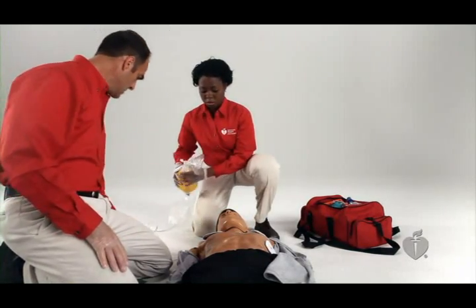Clear now. Be sure that no one is touching the victim, not even the person in charge of giving breaths. Ideally, you will pause CPR during or immediately after a set of compressions. Some AEDs will tell you to push a button to allow the AED to analyze the heart rhythm. Others will do that automatically. The AED may take about 5 to 15 seconds to analyze the rhythm. The AED then tells you if a shock is needed.